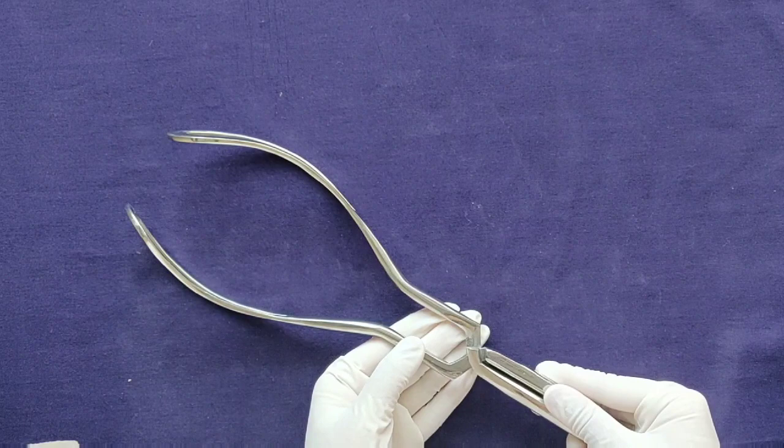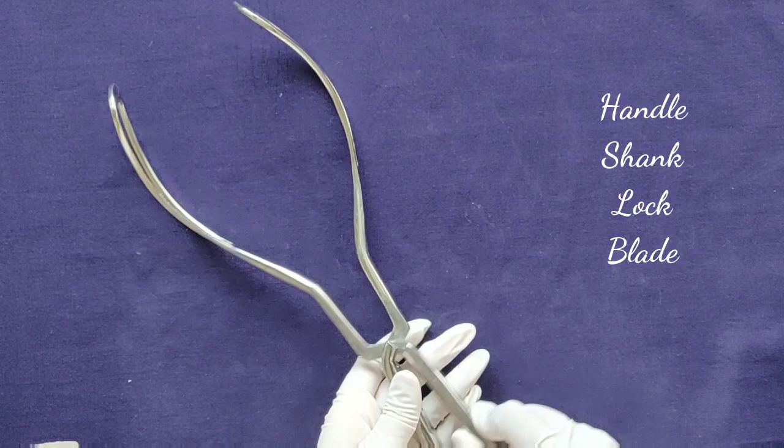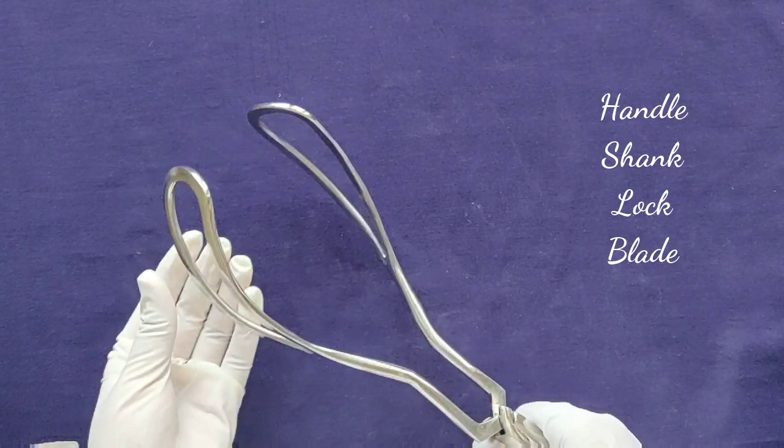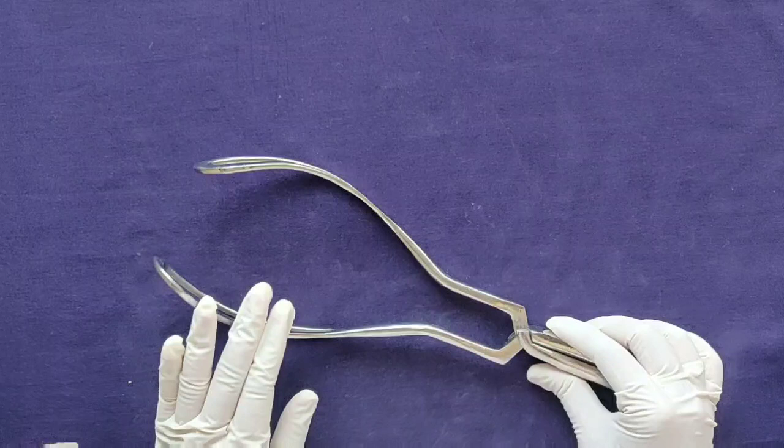It has a handle, shank, lock, and blade. It is a paired instrument where you can separate the two blades and lock them together with a fixed lock that cannot be slid. The blade has two curves and a fenestration inside — a pelvic curve and a cephalic curve.